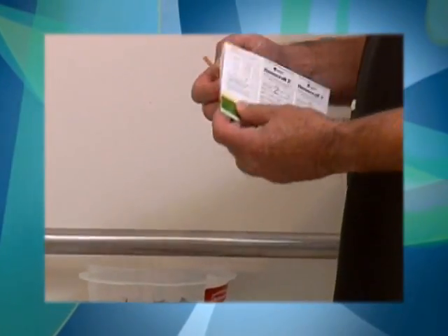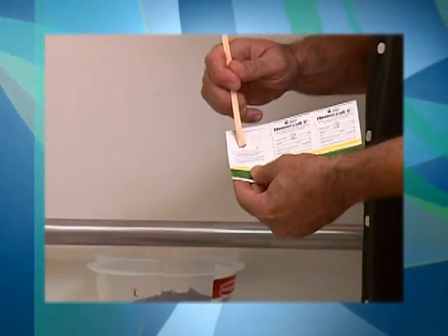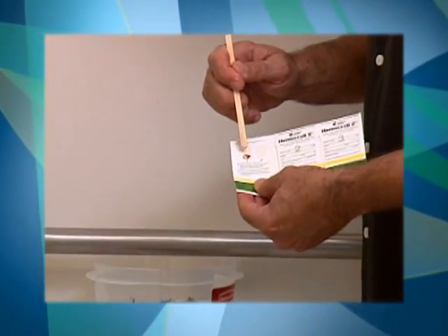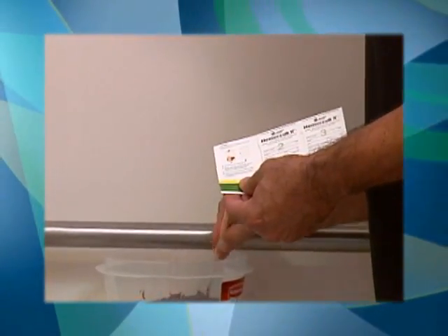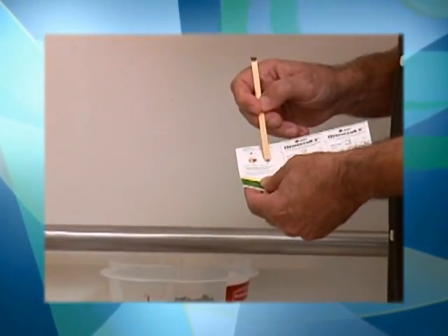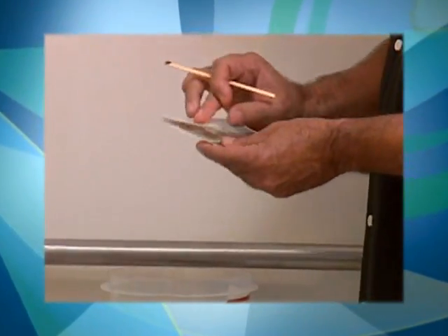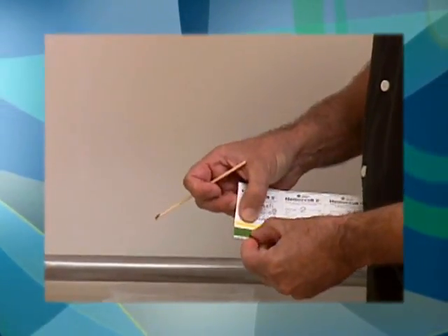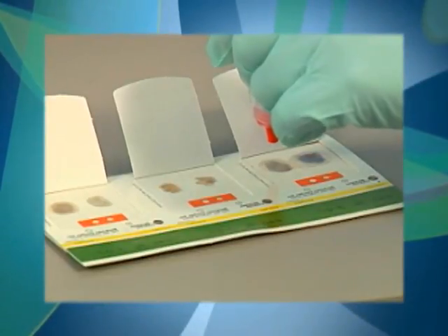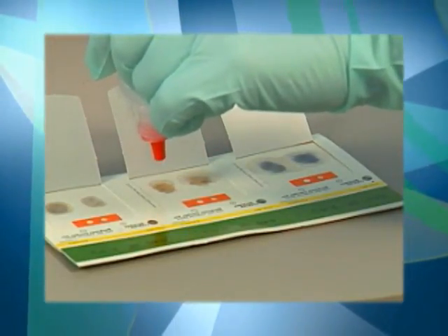Colorectal cancer is one of the most common forms of cancer in individuals over the age of 40 years. During the early asymptomatic stages, almost all neoplasms of the colon and rectum bleed in a small amount on an intermittent basis. This takes the form of hidden blood known as occult blood. Routine screening of stool specimens for occult blood using a Guaiac slide test is frequently performed in the medical office to screen for colorectal cancer.